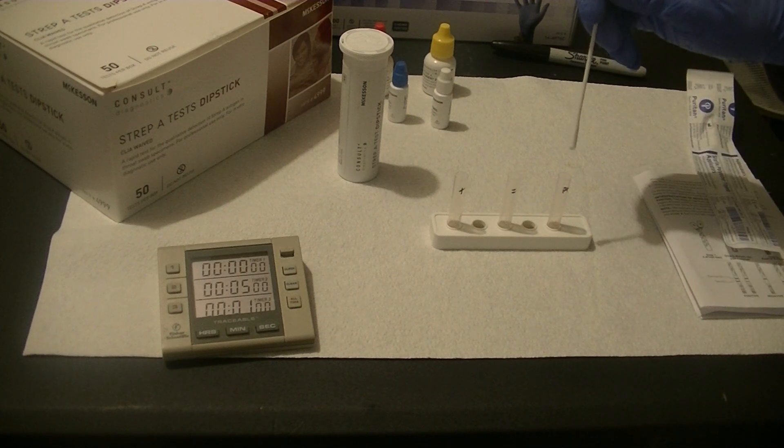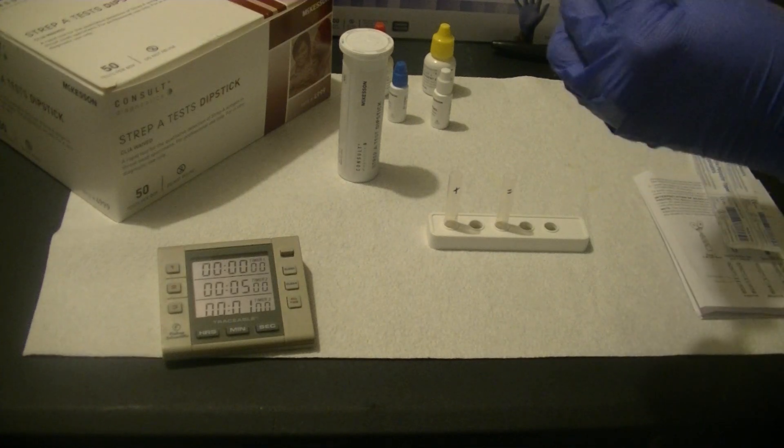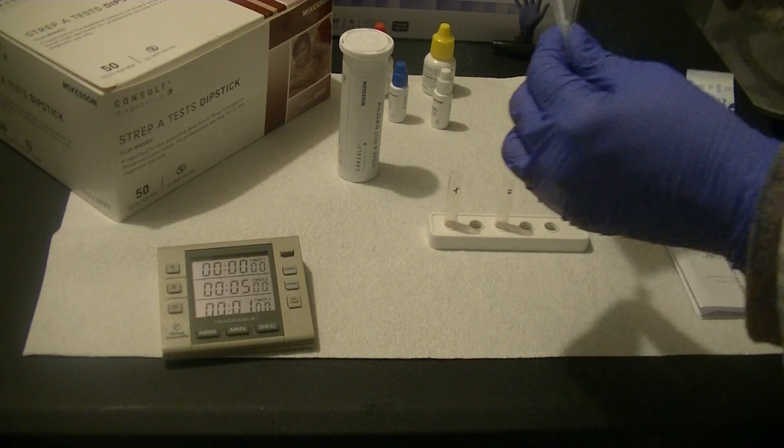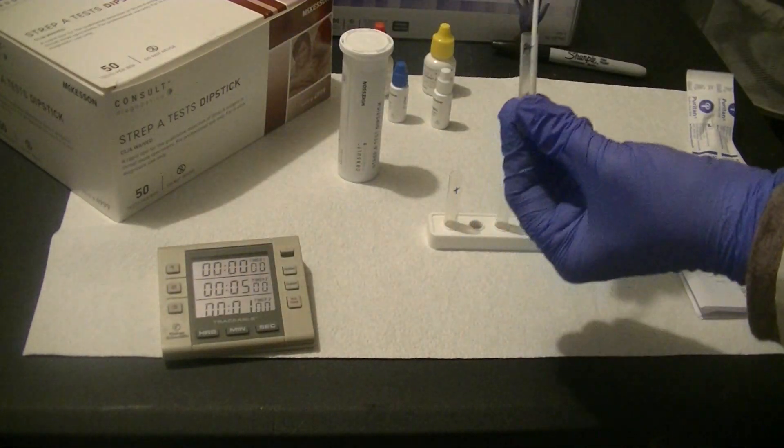You're adding the swab to the extraction tube, twisting it and squishing it in the tube, and waiting about one minute. So I'm setting a one minute timer.